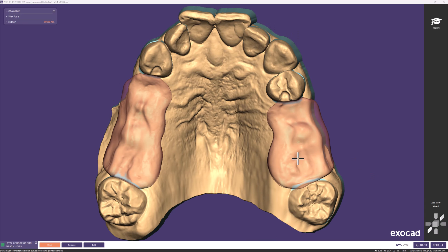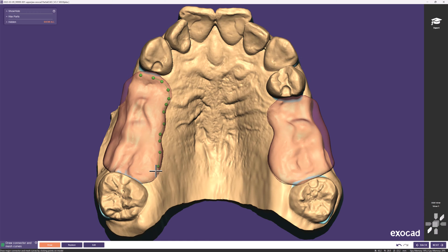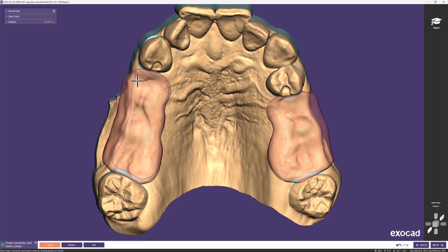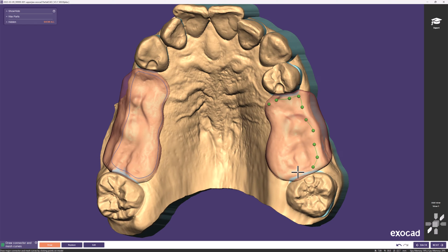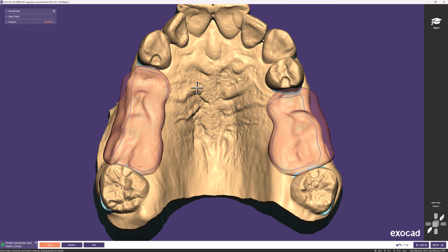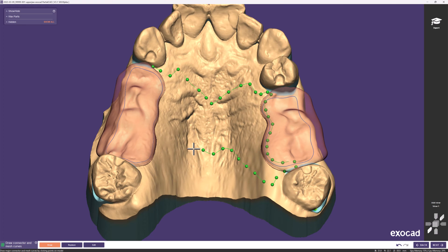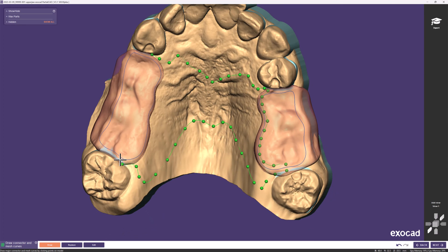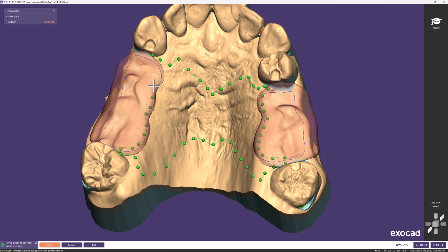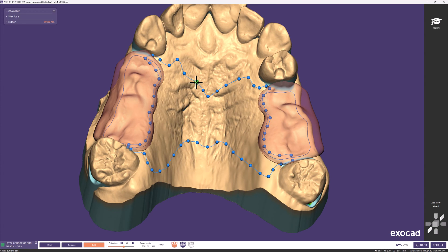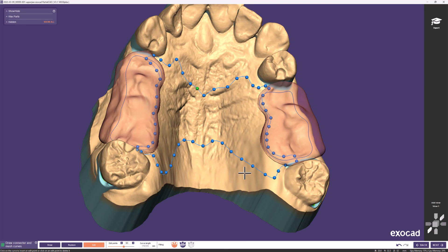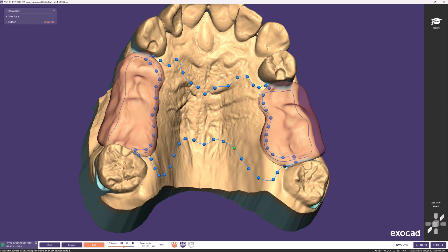While drawing your connectors and mesh curve, here is what is important for a Quick Snap case: the retention mesh should follow the gingiva and areas you want to connect to, though you get the option to automatically adapt it later. When drawing your major connector and using the semi-automatic finish line, the major connector should intersect with the gingiva, because this is where your finish line will be calculated. That is why it's recommended to draw the curve this specific way even if you would not normally do so for a major connector. For a skeletal plate, draw a second closed curve on the inside of your major connector, and for a tissue stop on your retention meshes, draw a second smaller curve on the retention mesh.